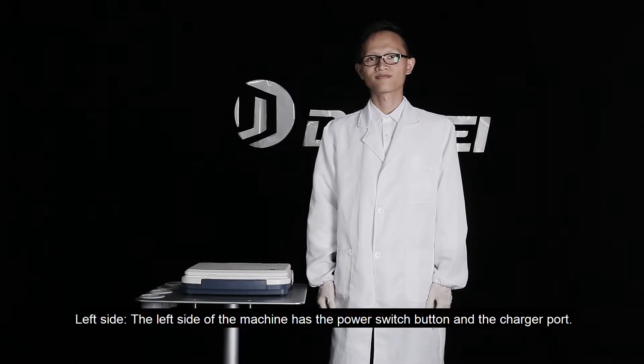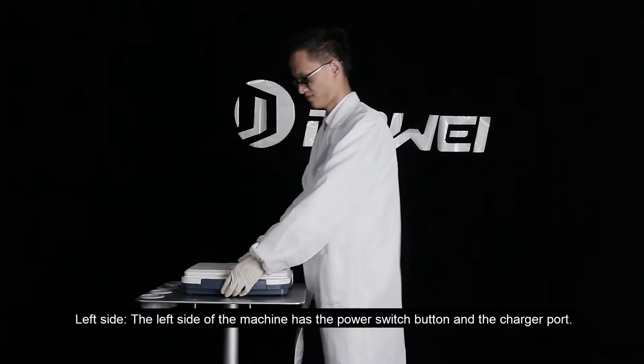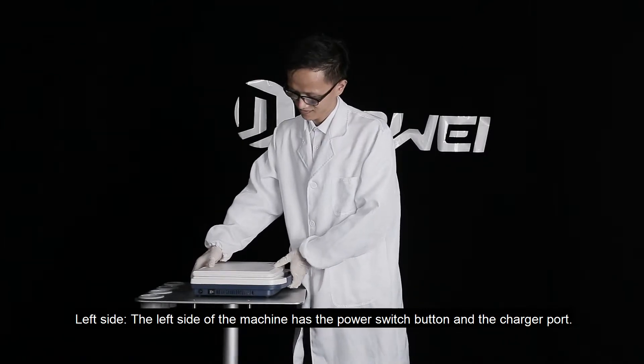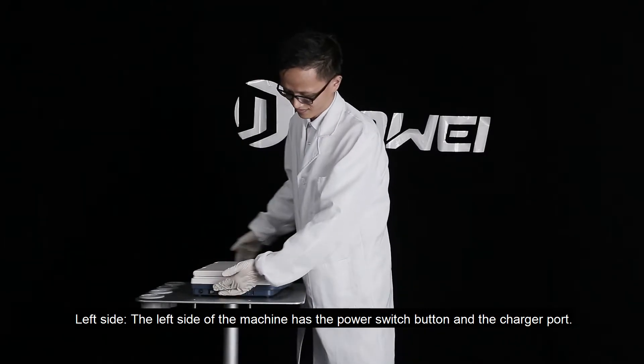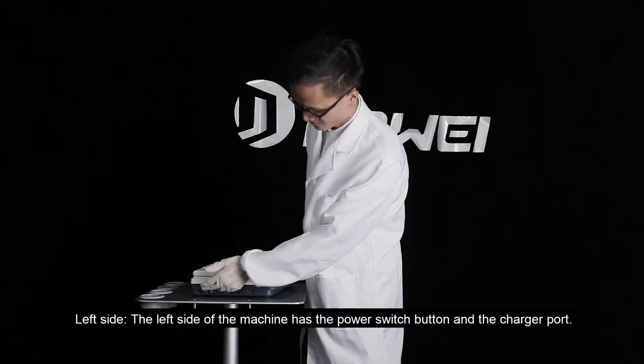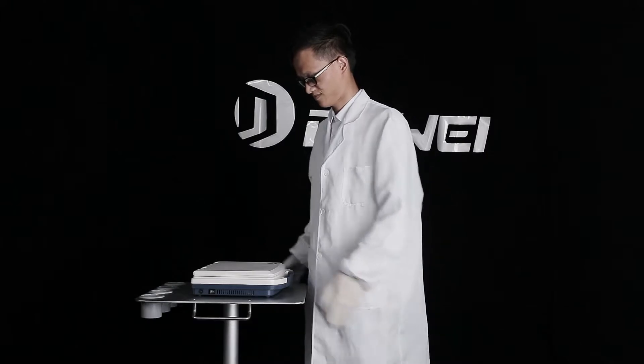Third, machine port and function introduction. Left side: the left side of the machine has the power switch button and the charger port.